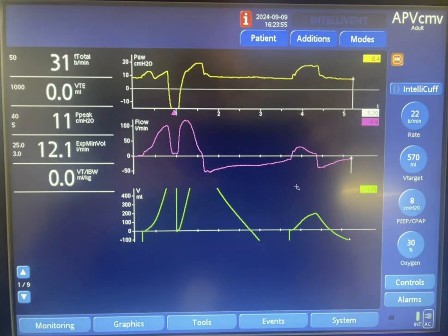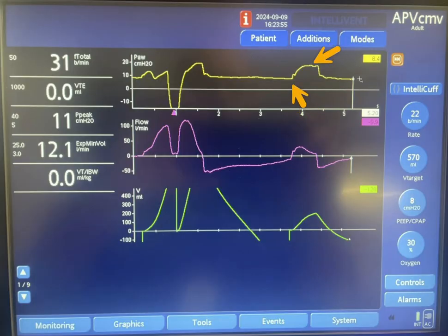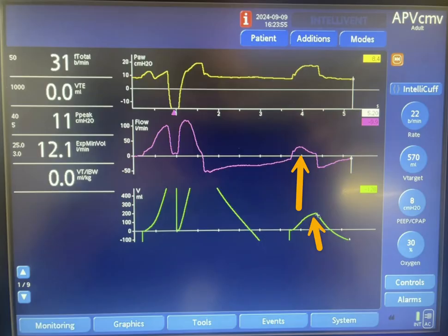You would confirm this by looking at the next breath. If we say there is still around 100 mL inside the lungs, in this breath the machine used the same pressure as the previous breath. The flow is much lower, and the volume delivered is around 200 mL. Of course the pressure in the next breath is going to be higher and higher to get back to that target of 570 mL.